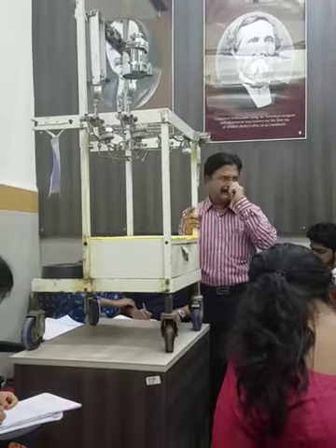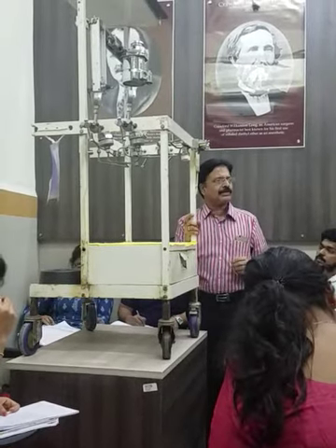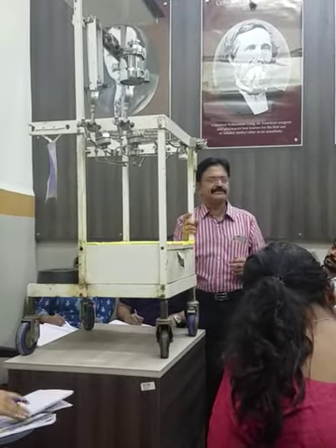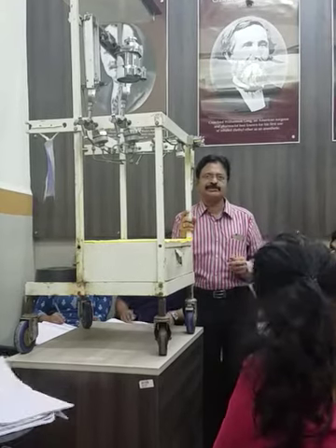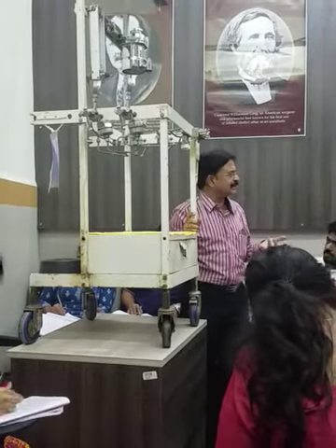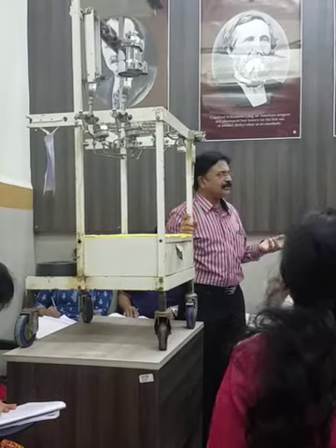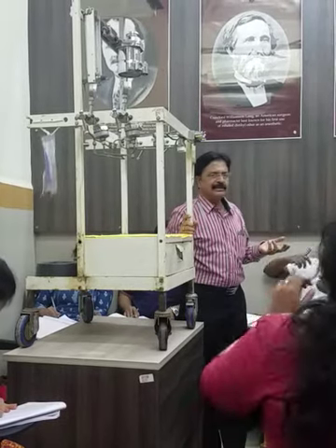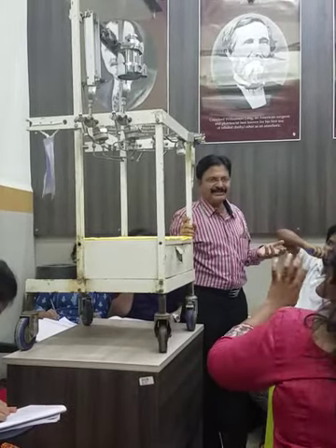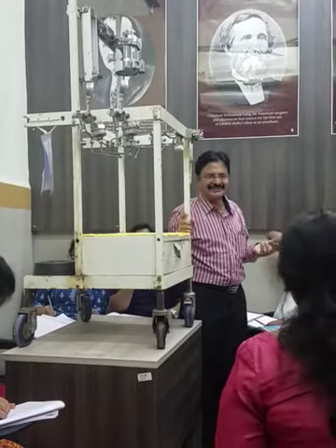Now let us start with the high pressure system. What are the safety features in the high pressure system? We will explain all of those after checking the other things.